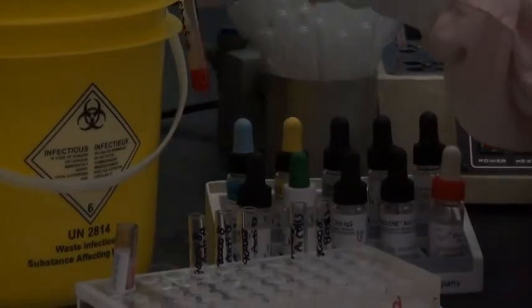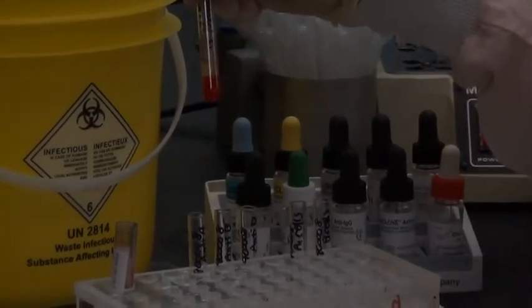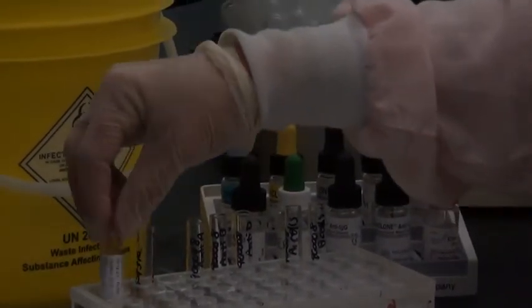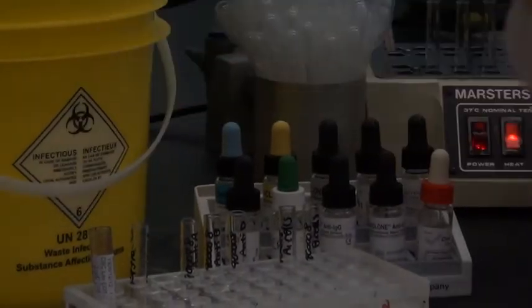And then just add some saline until you feel it looks like 5%. You can compare that to a comparison tube if you have one, or to one of your reagents. Back it goes beside your patient. Always do a quick check to make sure you've got your right tube beside the right patient.